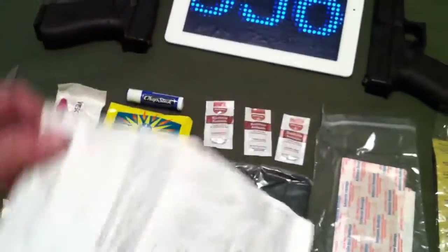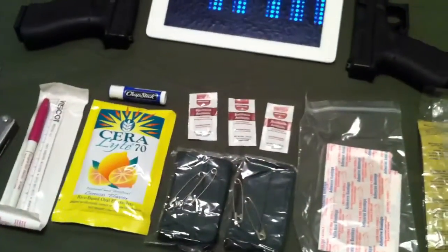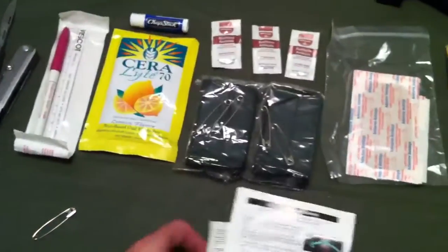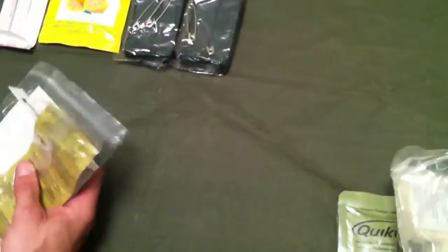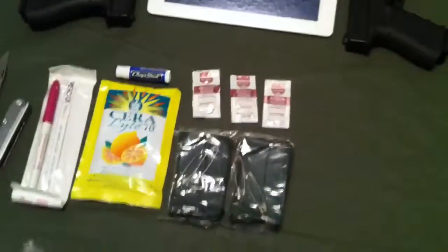And we got some instructions, a military chart for directions. So that's that one. We'll try to keep it as neat as we can and pack it back up here. They actually threw a couple large safety pins in there.